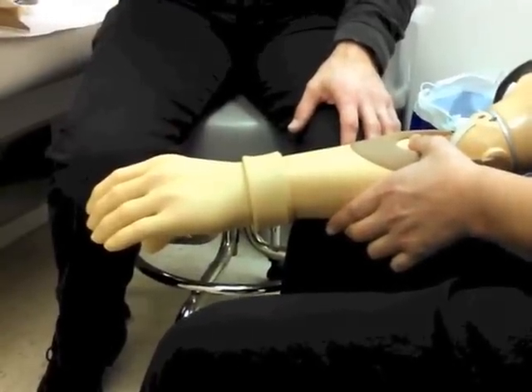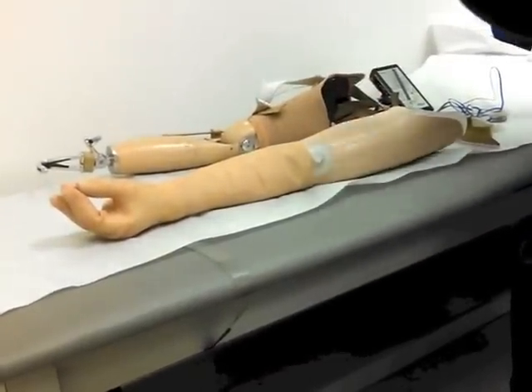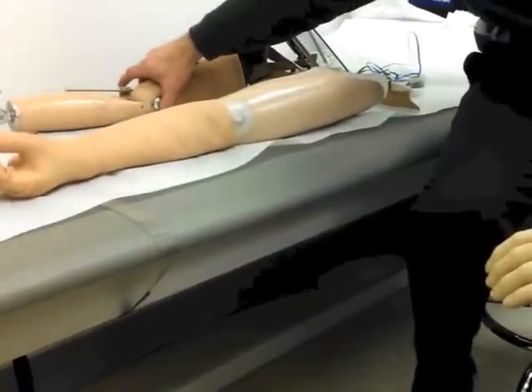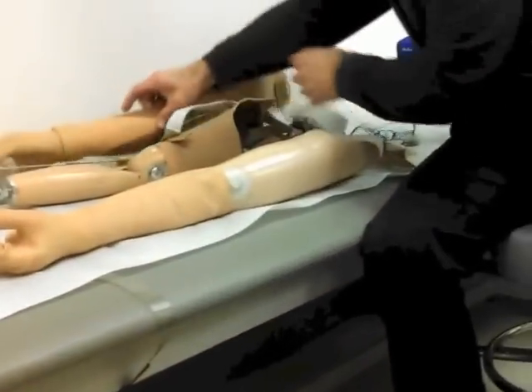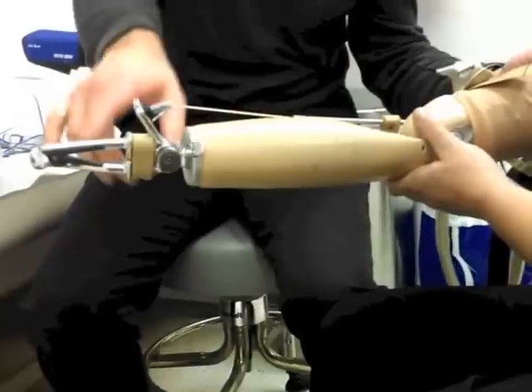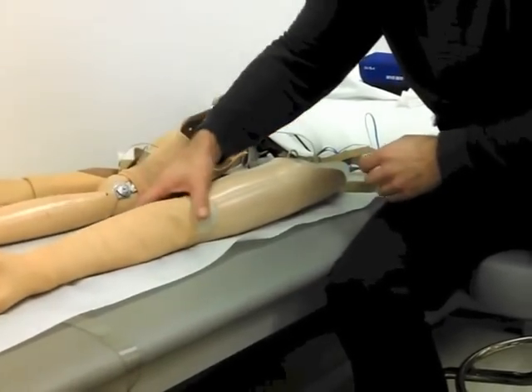I know he has done it for passive prosthesis. Honestly, I don't know for body power, which is next. I'm kind of jumping around here a little bit because you're looking at the gloves. Sometimes what he'll do is get the glove and bring it up to the elbow, then do a second part that goes on the upper part of the humerus section. Going from the passive prosthesis, this is the body power — and this is fairly light. But it has a harness system that's attached to it. In reference to the myoelectric, it's a lot lighter. It's functional — the elbow bends, it opens and closes. There could be a hand attached on both prostheses. Each one has its own way of functioning.